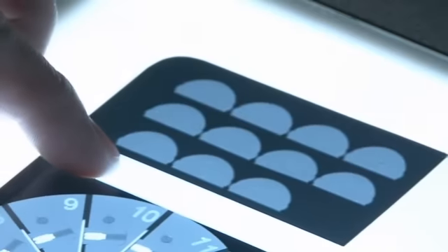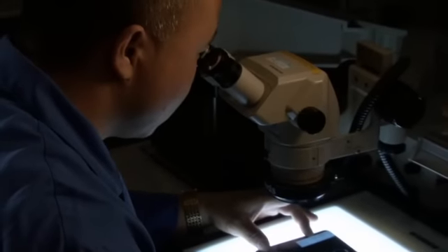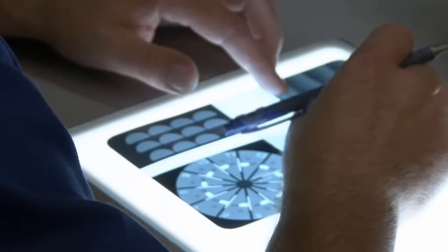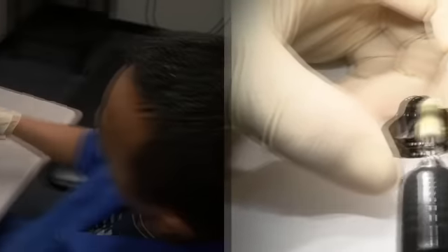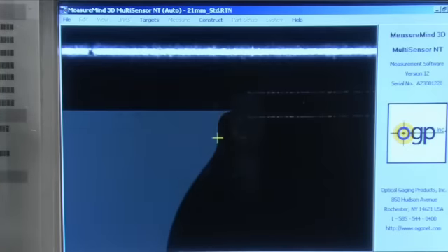After completion of the initial operations, there are many workstations where each valve is 100% inspected to rigorous St. Jude Medical specifications: 100% microscopic inspection for visual defects, 100% x-ray inspection for internal component and coating defects and coating thickness, and 100% dimensional inspections to ensure precise matching of individual orifices to dimensionally compatible leaflet pairs.